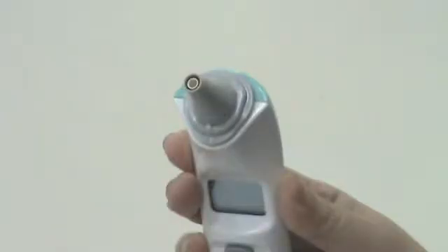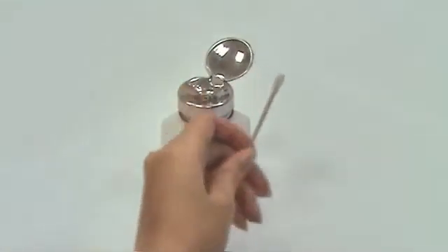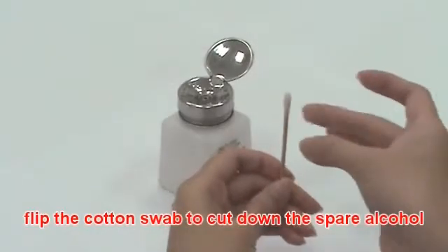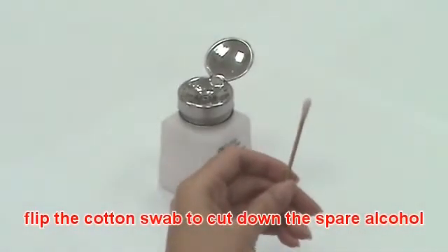If the device is accidentally used without a probe cover, please use a cotton swab with 70% concentration alcohol to clean the probe. Slightly flip the cotton swab to cut down the spare alcohol.